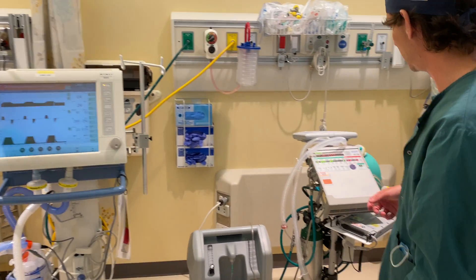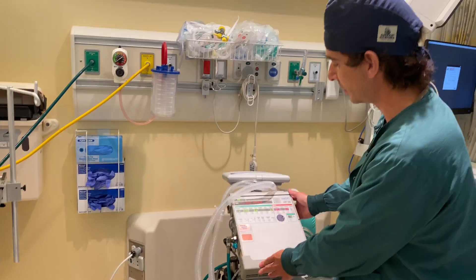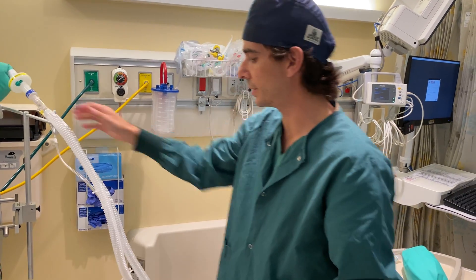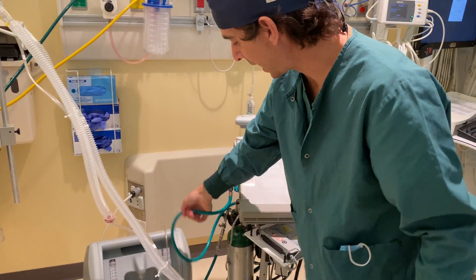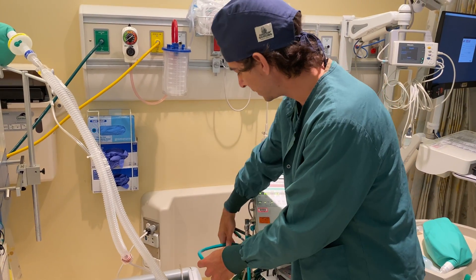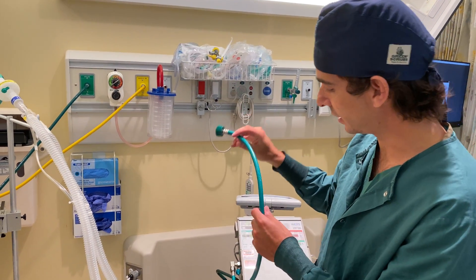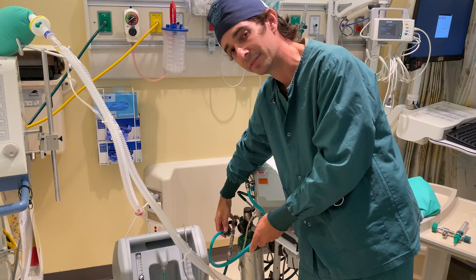We'll walk over to another ventilator. This is the LTV-1200 transport ventilator. There are a couple of key features to note here with this vent. First, it has a similar oxygen connection as our ICU ventilator. This connects to the same wall source, and similar to the other ventilator, it can also connect directly into an oxygen cylinder, which I have down here below.